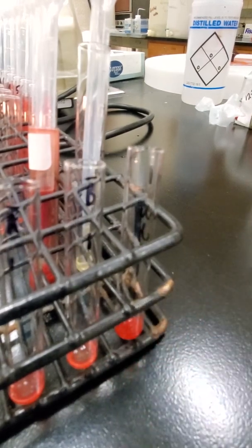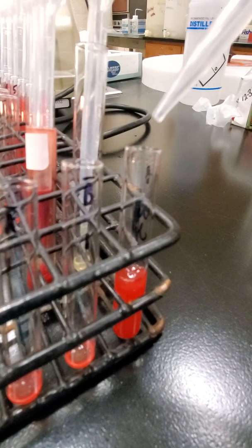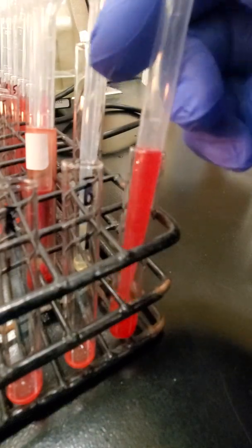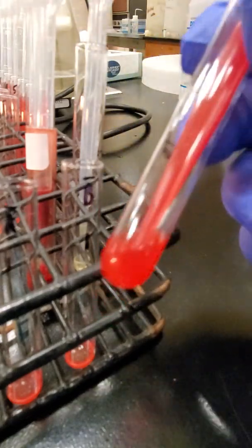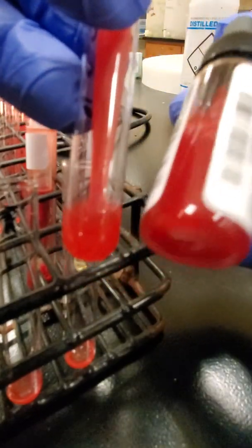So I'm going to add saline just a little bit at a time, and typically when you use 2 to 3 drops of concentrated red cells, it's about maybe a little less than halfway full. So I'm just going to take my pipette, mix that up and down to get that cell button at the bottom mixed in. And then I'm just going to compare. That looks actually pretty good. So I'm going to compare it to my reagent red cells. And that looks pretty good. And again, it is a range, so my reagent red cells are a little bit heavier than my sample, but that's okay. It looks about right.